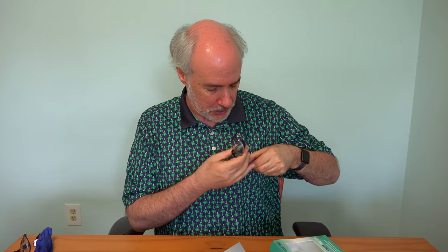I have quite a collection of reading glasses from different pairs that I have reviewed. With reading glasses, you do need them everywhere because you never know where you'll be when you need them. I'm hoping that this little clip I wear — it's called a reader rest, I reviewed it in a different video — it's a double magnetic piece that gives you a place to hang your reading glasses so they're easy to grab, put on, do your reading, take them off, and you always have the same pair with you.